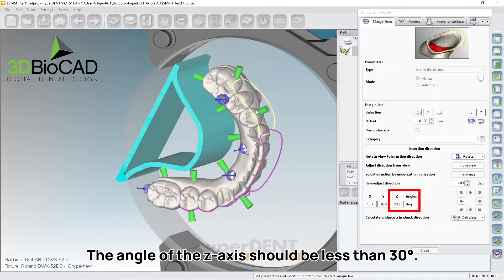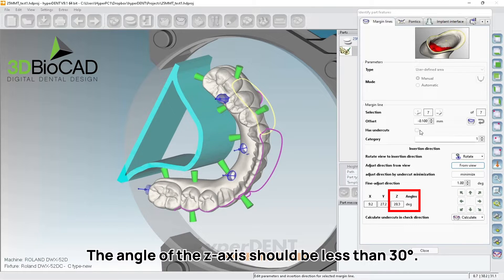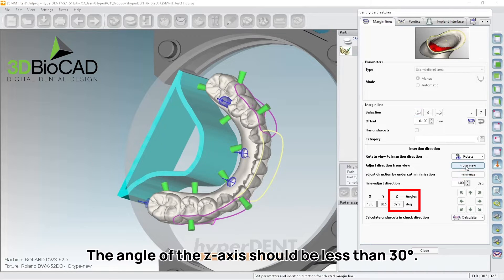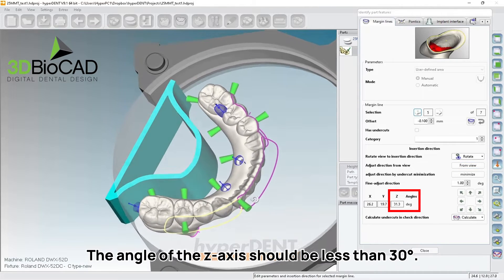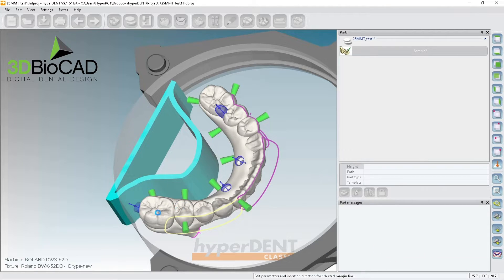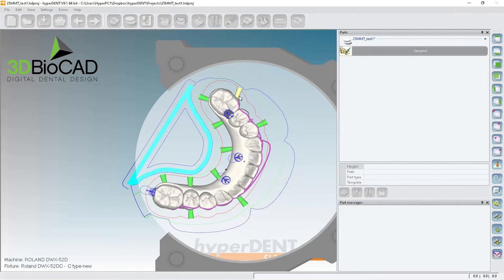I was tilting a little bit less just to stay under 30 degrees. Let's check: 33 — same — 32, 29.7 — perfect — 31, 27, 20. Okay, perfect. That's pretty good. We're still able to mill this case.